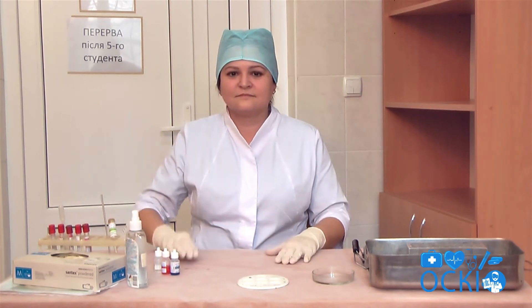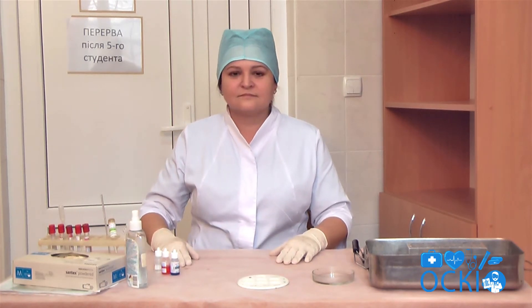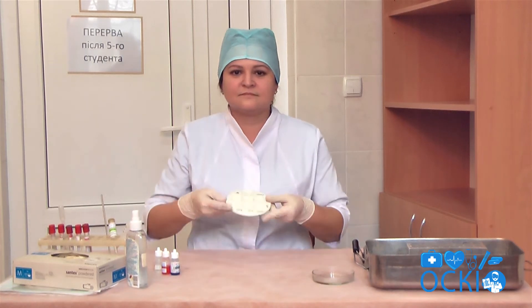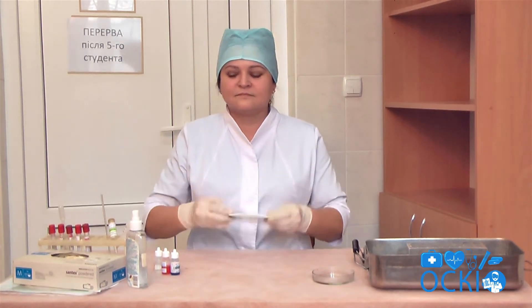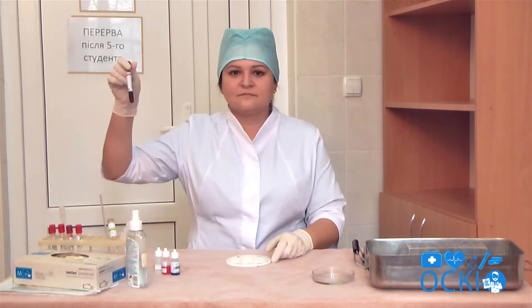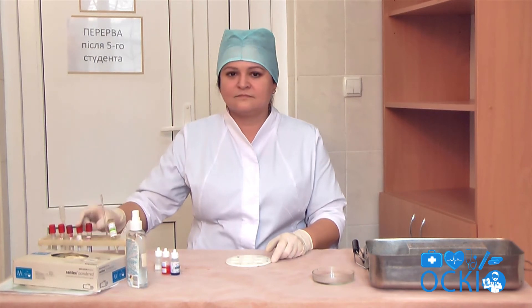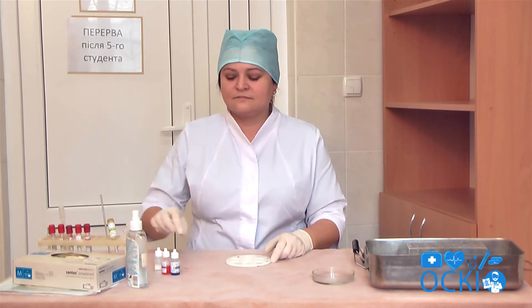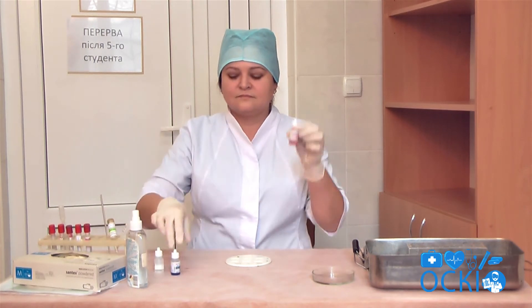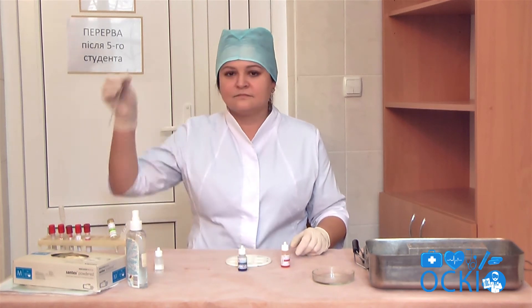Choose the items you need to determine blood type: a blood plate, patient's blood, coliclone anti-A, coliclone anti-B, a glass stick, and a pipette.